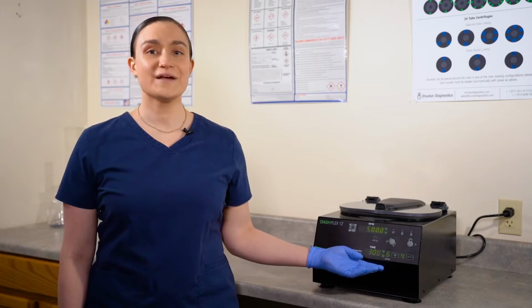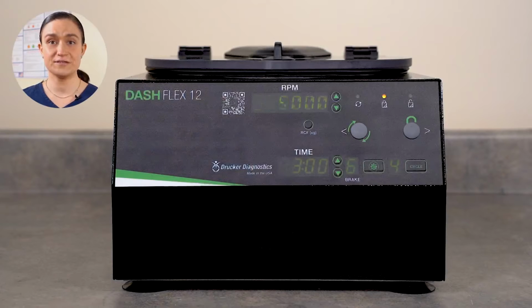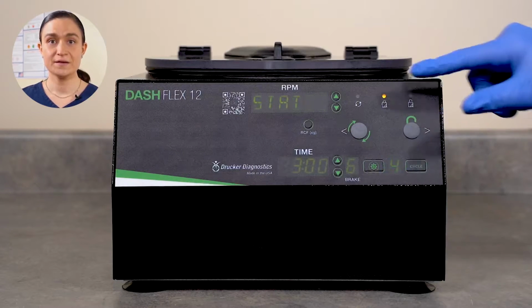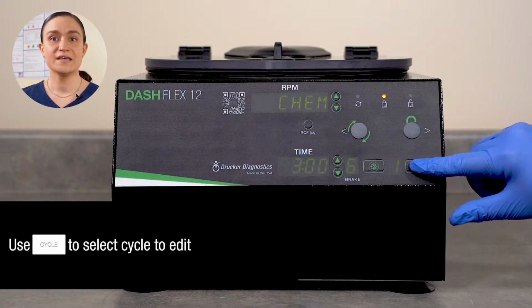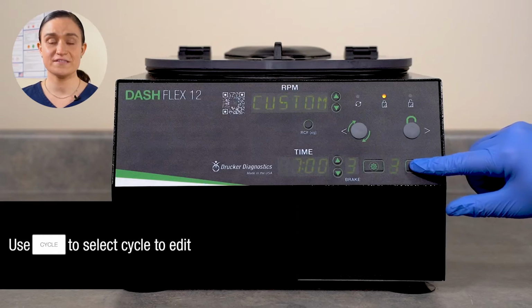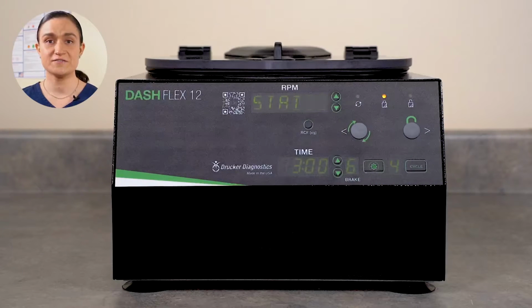As a quick reminder, your Flex 12 has all of its controls right here on the front panel. Today, we're going to use all these buttons. We're going to start by selecting the saved cycle we want to edit. Hit the cycle button until the name of the cycle you want to edit displays in the RPM screen. Your centrifuge will alternate, showing the RPM value and the cycle name.